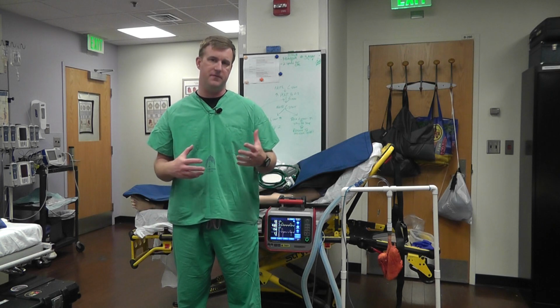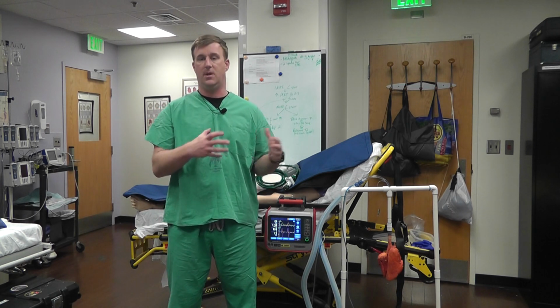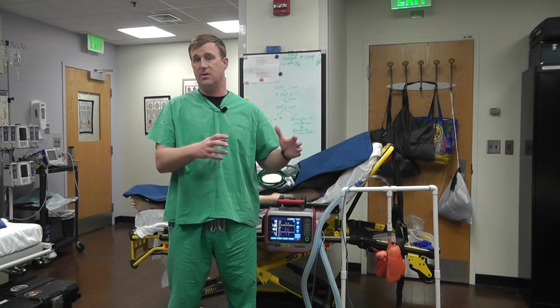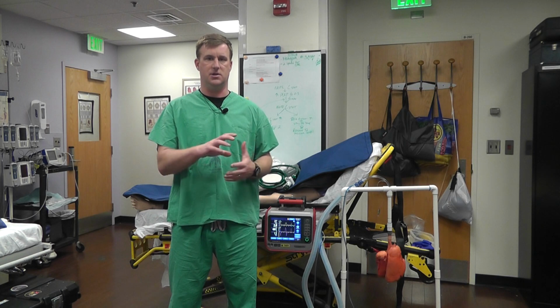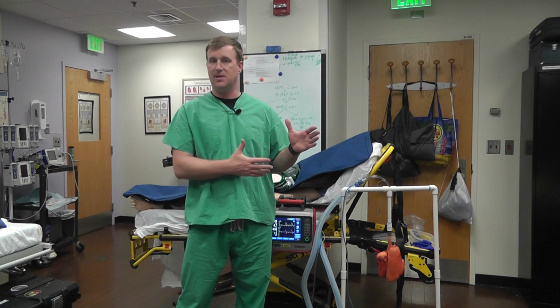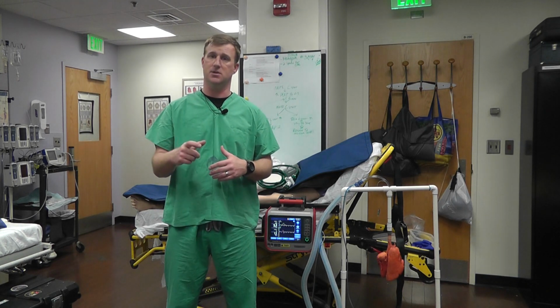With the evolution of these COVID patients, we're finding out that while the high PEEP table works for a lot of the patients, there's another subset of patients, earlier in their disease process or even later, that just haven't developed that consolidation type of pathology, where the high PEEP table may actually be detrimental. So the goal of this is to optimize PEEP on an individual patient.